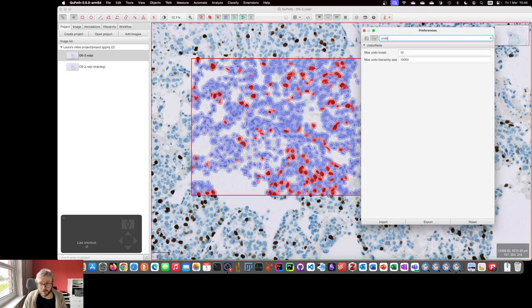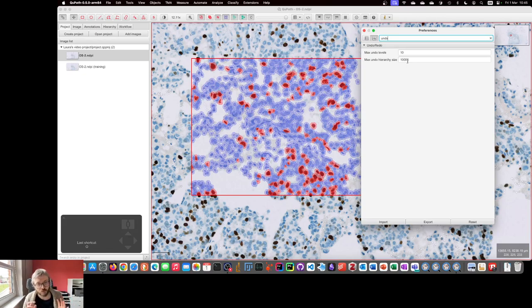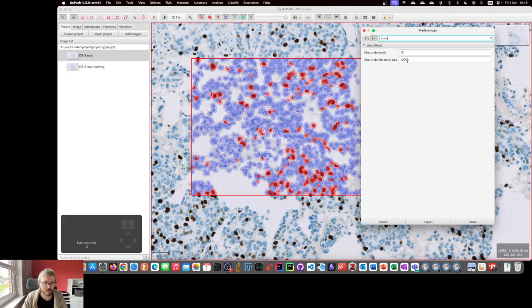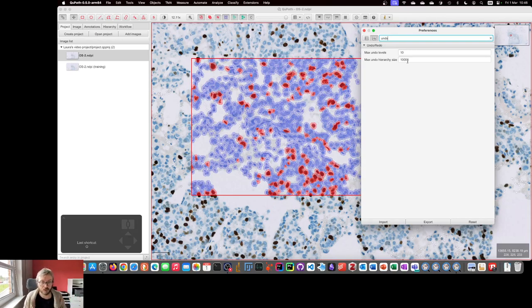Later on, I became convinced that, actually, we need some kind of Undo, because particularly if you're annotating images, no Undo whatsoever is horribly awkward. So, you can have some level of Undo within QPath. But if you go into the Preferences and search for Undo, it has this parameter of the Undo hierarchy size, which basically, that's the number of objects you can have in your image. If you have more objects than that, the Undo will just shut off, because it's going to be too hard on your computer to maintain it.